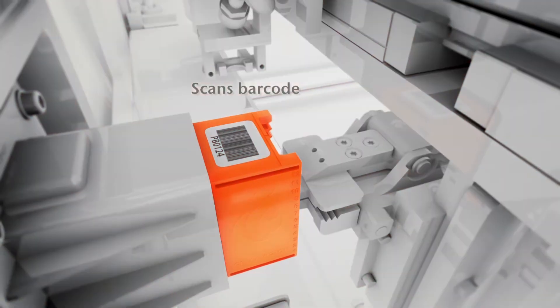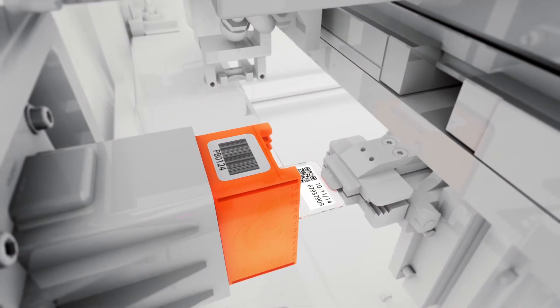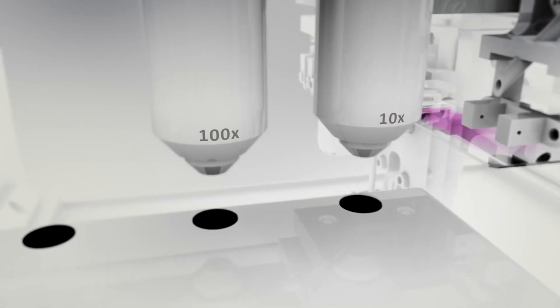The system scans and reads the slide barcode and queries the laboratory information system for patient demographics and order data.